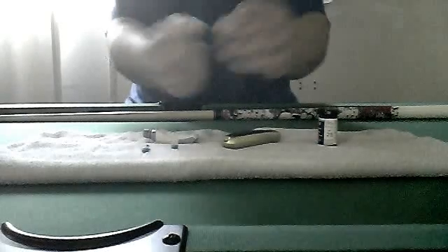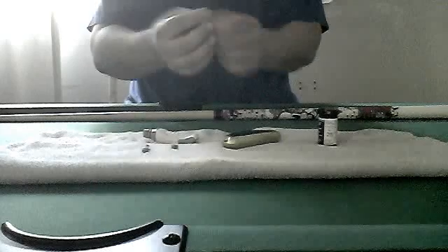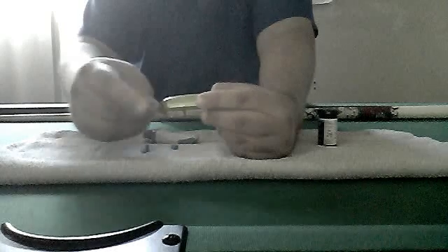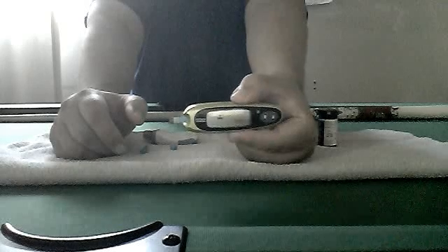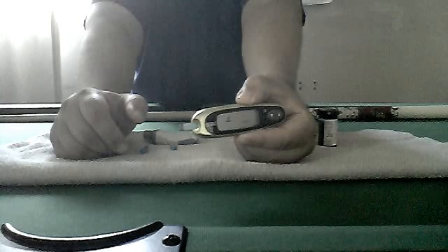Let me pick one out — they look like this, tiny little things. You put one end into this machine, then it'll just go in. You can see the numbers, and once it shows you a little dot — watch, there's a little dot — that means give me blood.